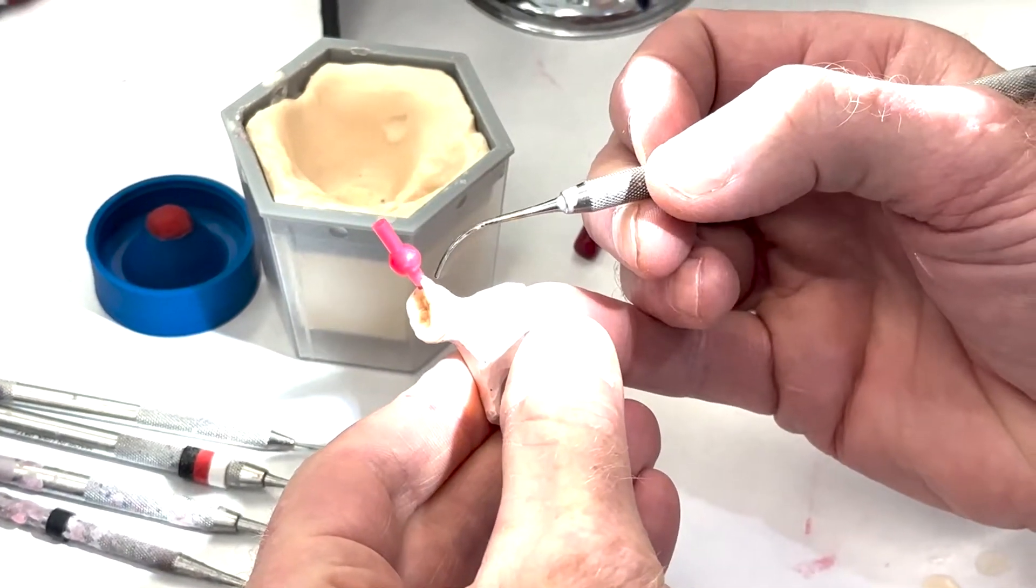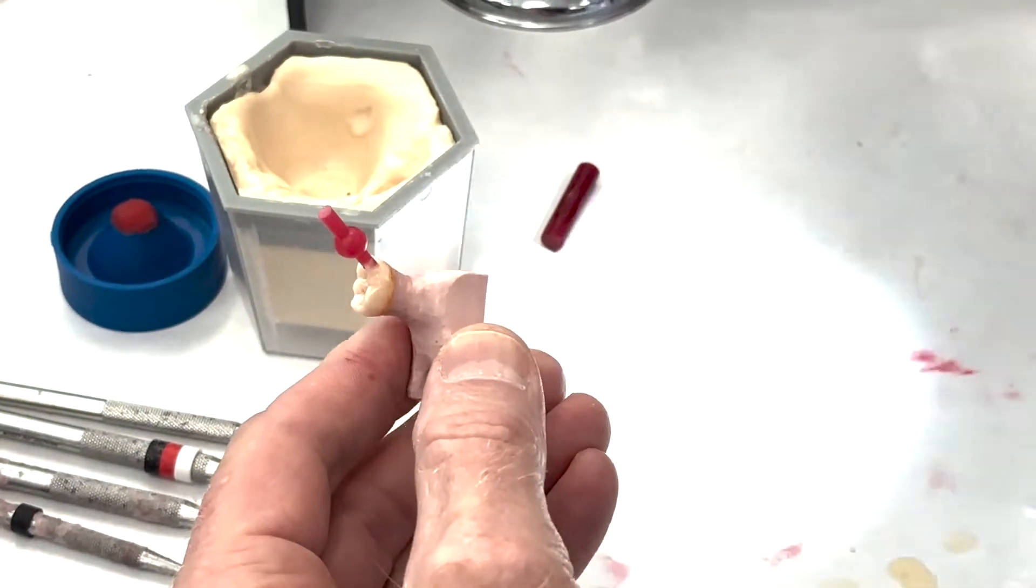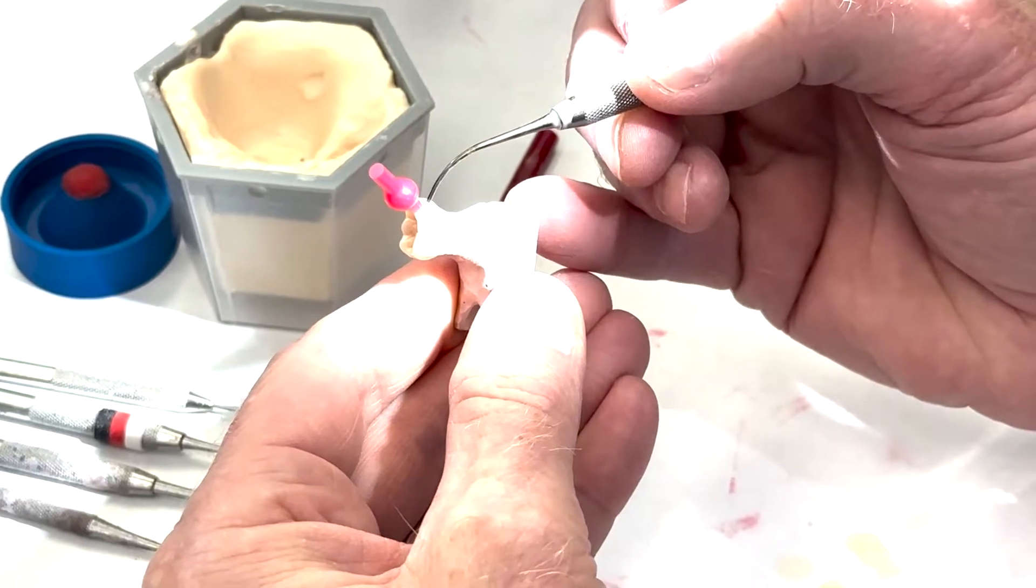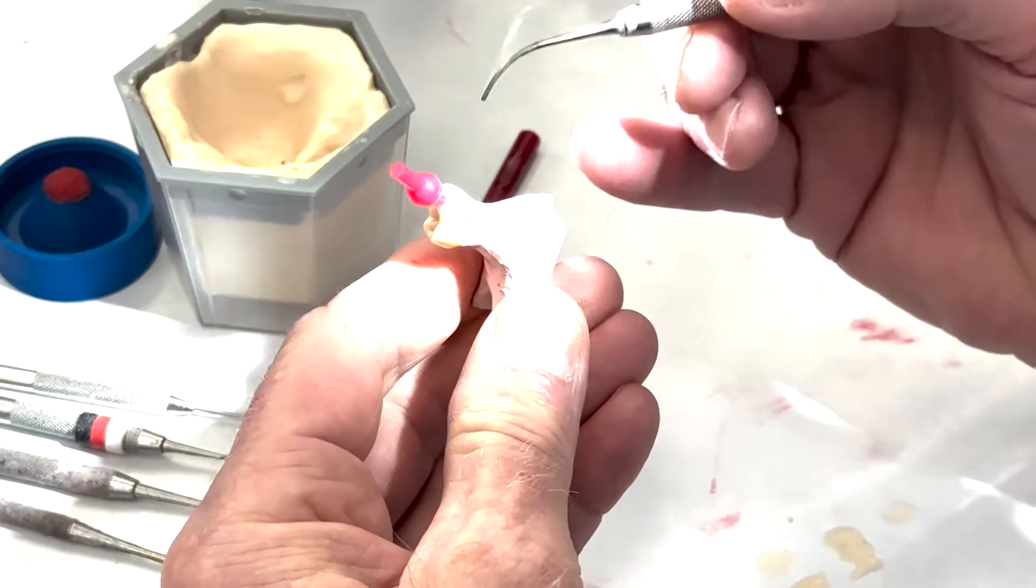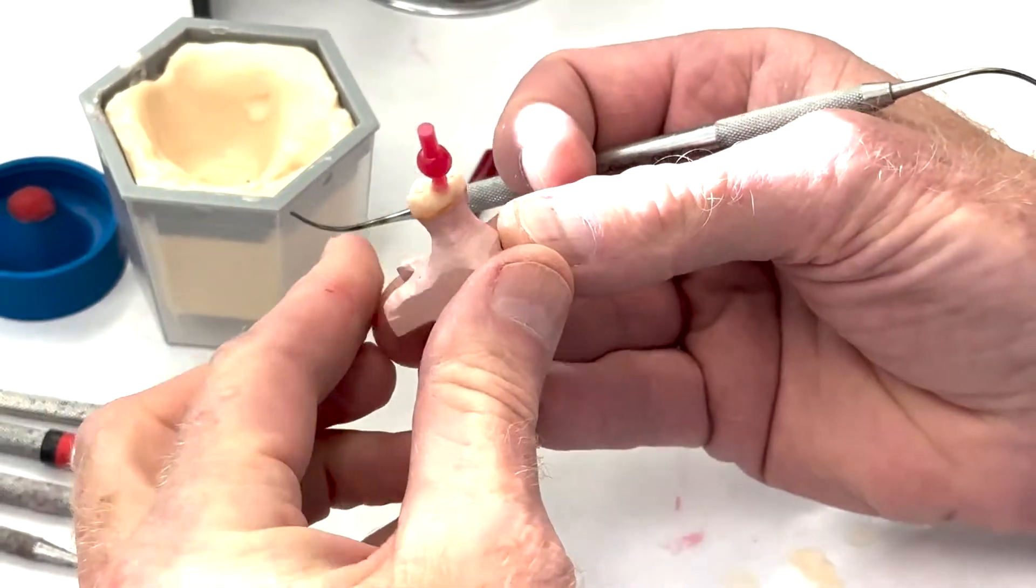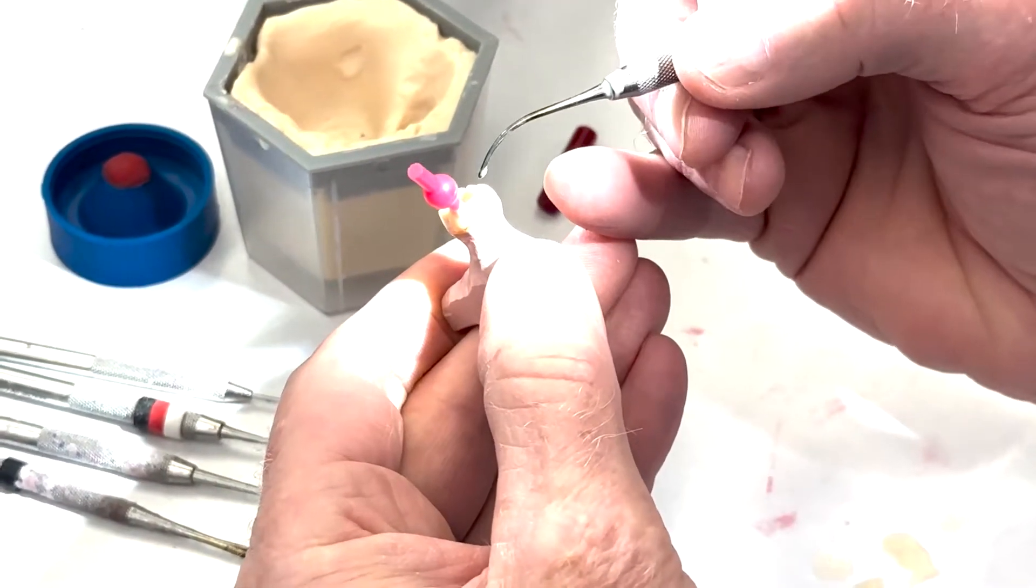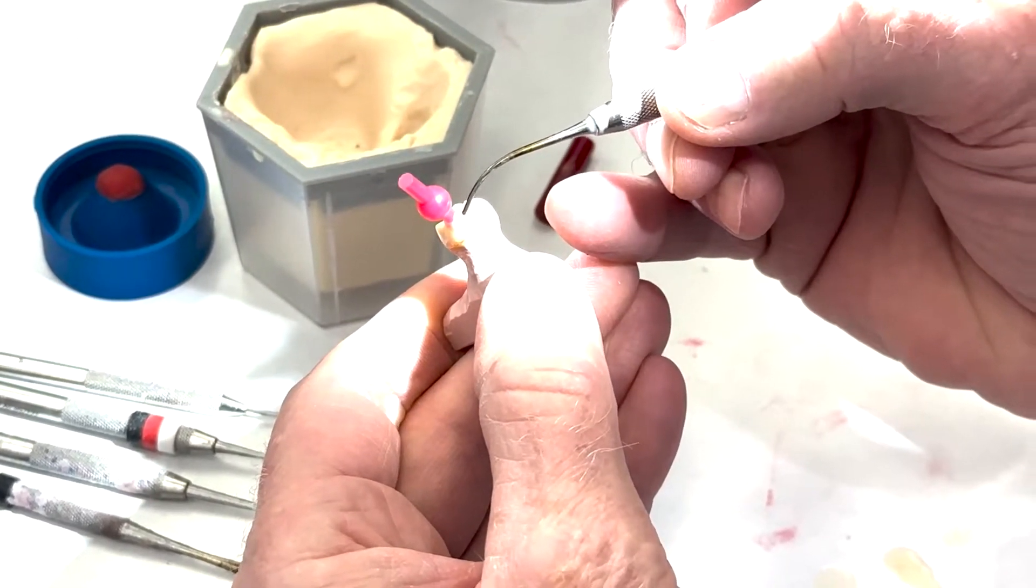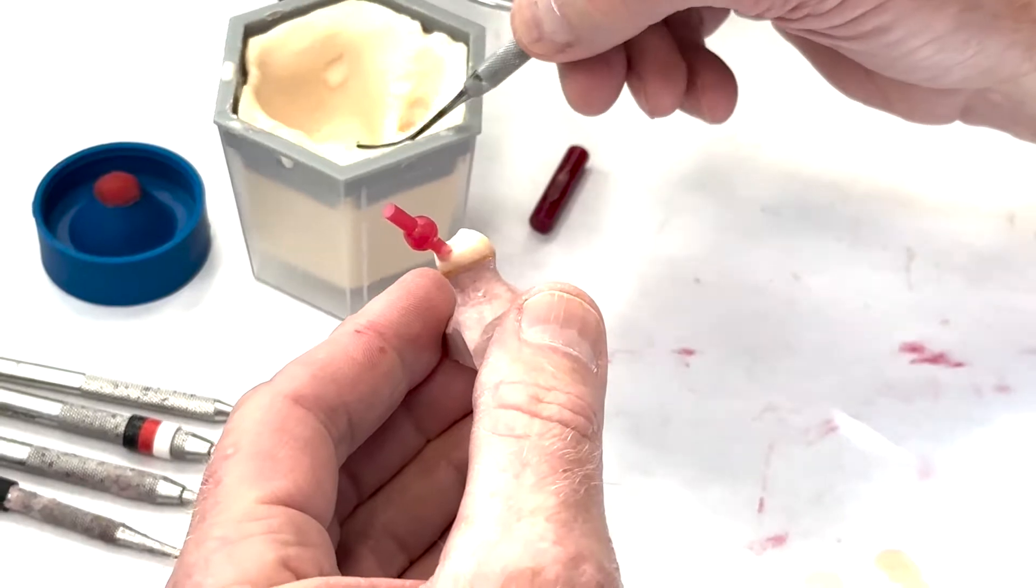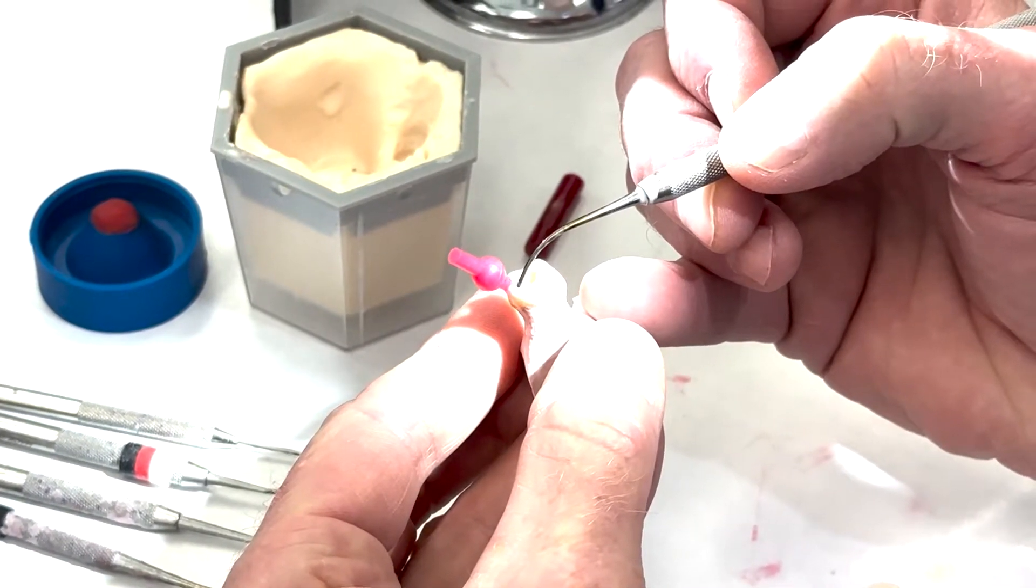We're going to flow this around a little bit. You want to say why that's important? Yeah, smooth that. You don't want necking. If you constrict the flow into your wax pattern... but we're talking about the latter here, yeah. I gotta be careful, right? I was hoping you'd get to that. Okay, there we go. So now I'm just creating kind of a little funnel shape to get rid of any constriction at the entry point here. Thinking fluid dynamics, right? That's bigger than I want it, but it'll be okay. And we'll spread it out a little bit.